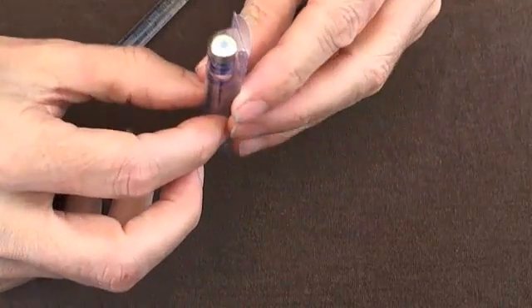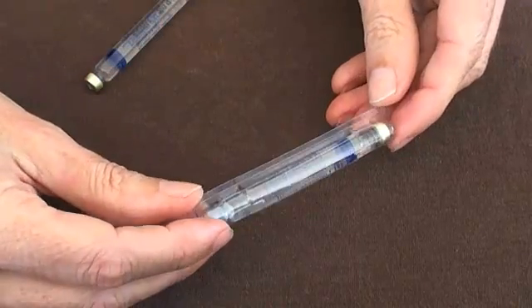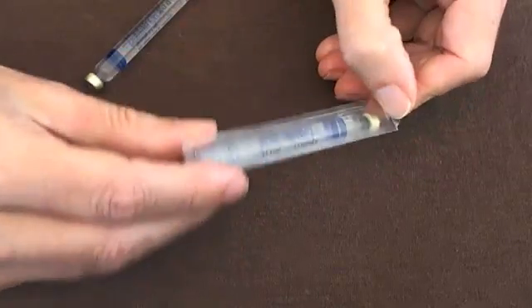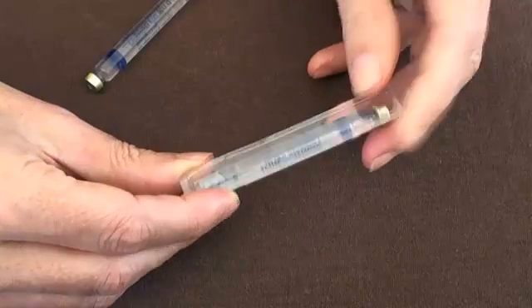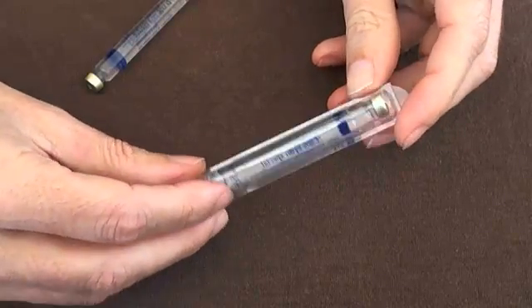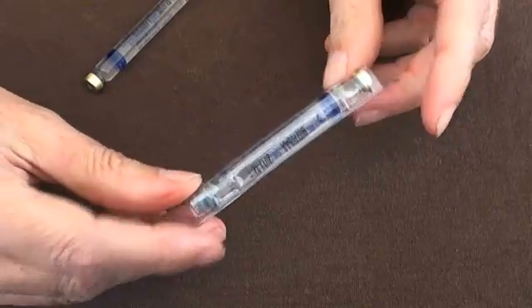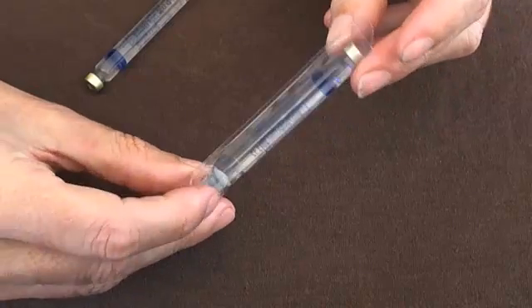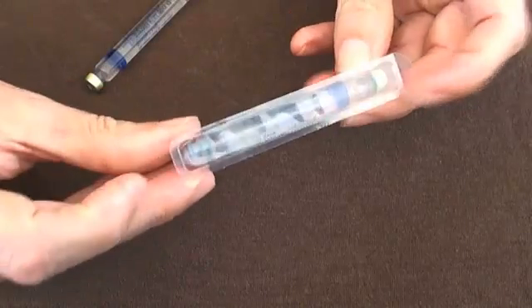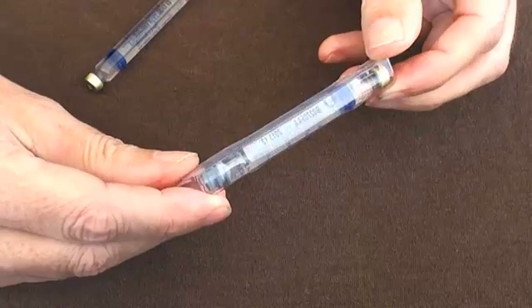You can see it's sealed in this blister pack. These have been sterilised, so whilst they remain sealed within the blister pack it prevents any bacteria, viruses, or any other contaminants getting on the carpule. The first thing you do before you get a carpule out is actually just check by running your finger around it that the carpule still remains sealed within its packet.